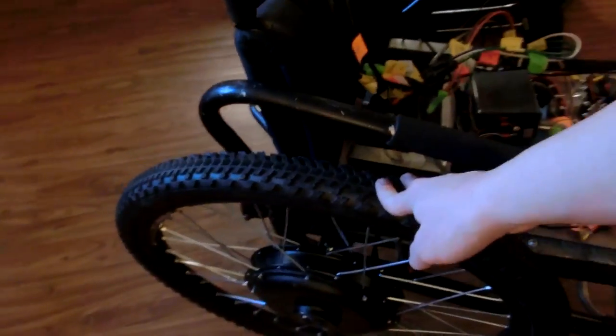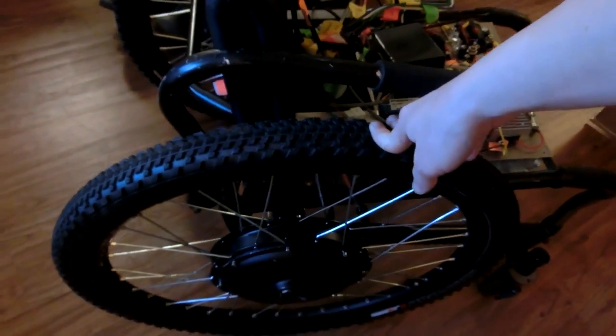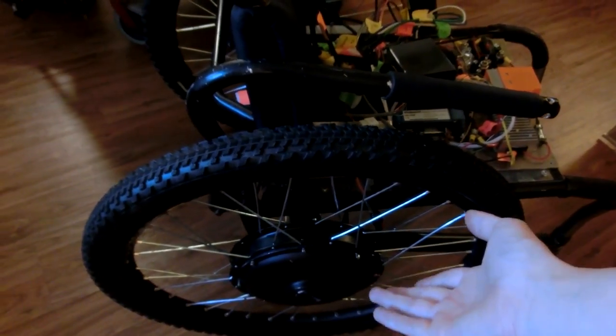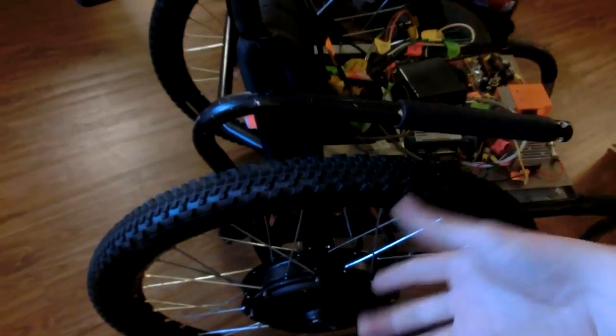Okay because I was thinking this was just something that came with it because usually sometimes like my electric hub motors for my bicycles come with the tire but they're like the cheapest one they can possibly get you know. Yeah. No these aren't cheapies. They're really good. Oh nice then.